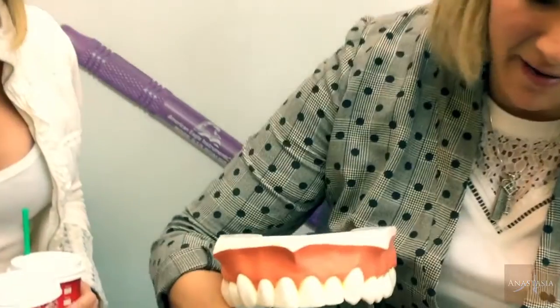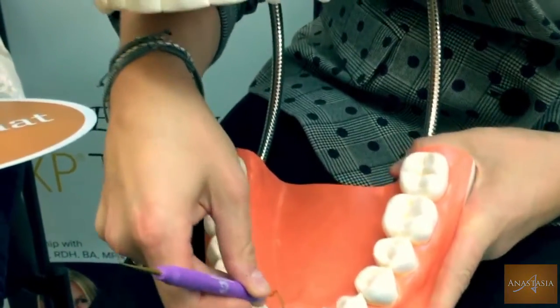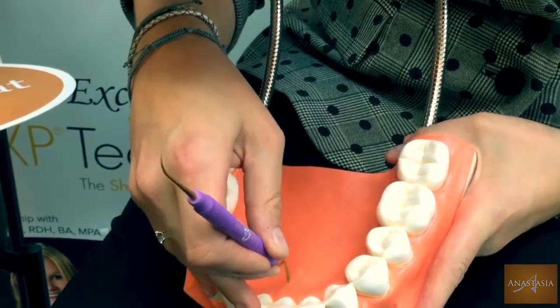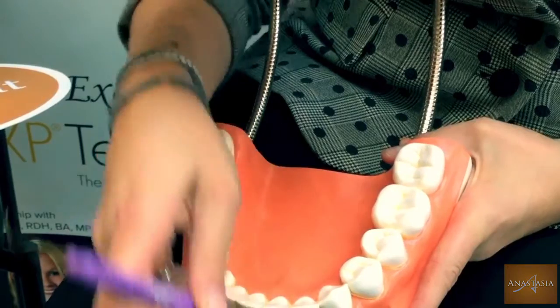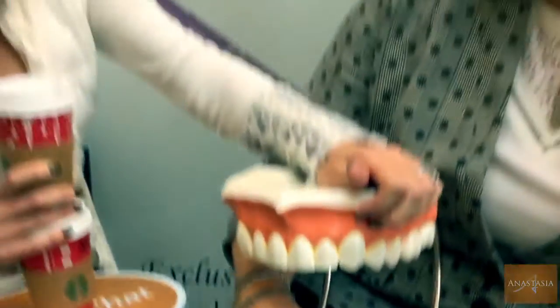You're going to use this instrument primarily when you're cleaning these lower anterior teeth, especially if people have those fixed retainers that you can never get down and around. Or for your elderly patients that have a whole bunch of recession with some abfractions, some notching along the cervical margins. What about the people who have tongue piercings? I see a lot of recession in the mandibular linguals. That's really tough because it collects so much tartar and a lot of stain. Even if you use an ultrasonic tip, sometimes we seem to gouge but we don't need to. So this lifts it away.